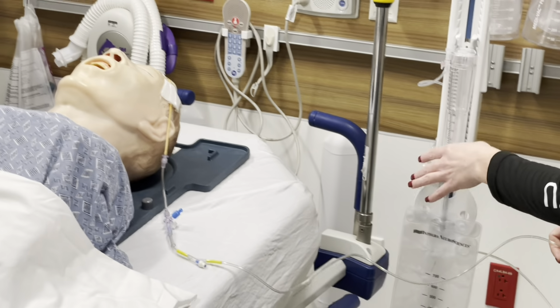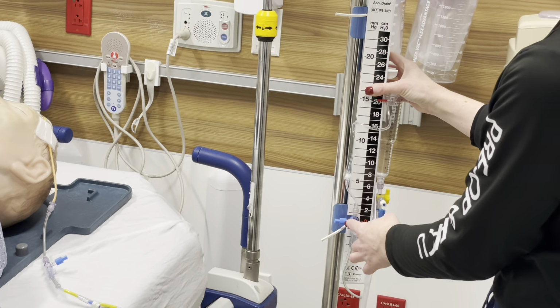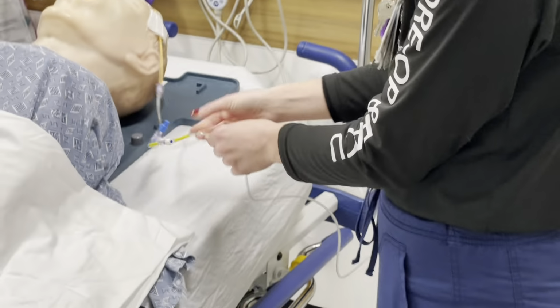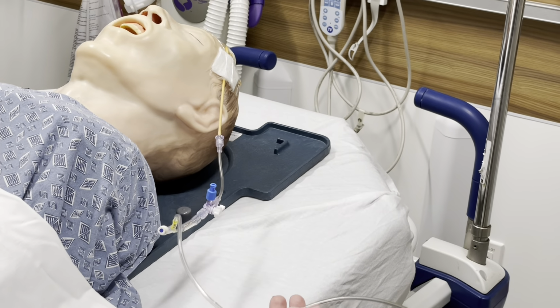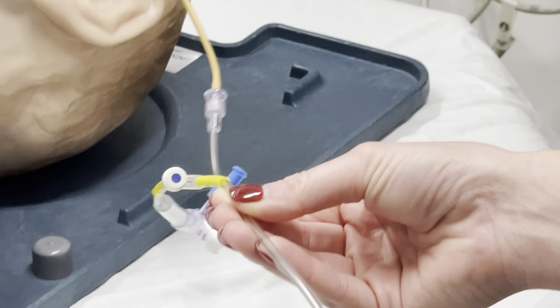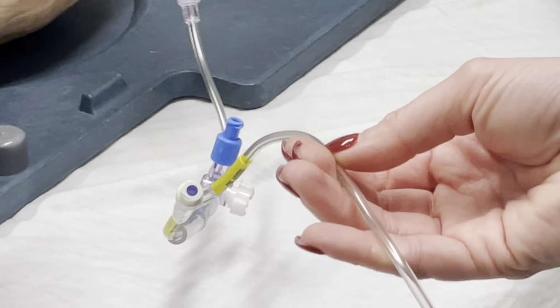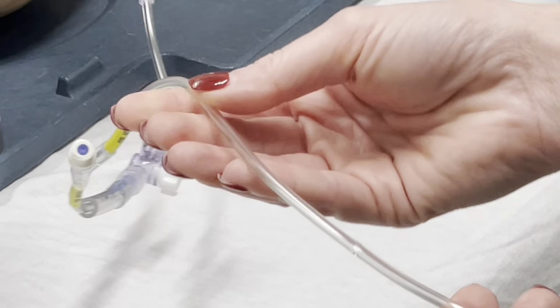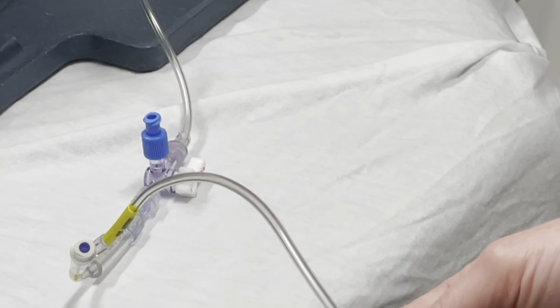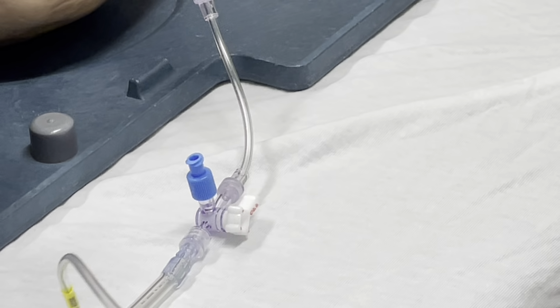When they come out of the OR, they will have this whole thing set up this way. They will not have the transducer, which we will do in just a moment. What is important is that all of this here is going to be flushed by neurosurgery or the neurosurgery PA. So it should have clear fluid in it. It should be sterile, normal saline, and maybe a little blood tinge depending on what their injury is. But if you notice that it has no liquid in it at all, it's all air and nobody flushed it, that's something that you're going to have to end up calling neurosurgery for. That's not something that we're going to be doing.